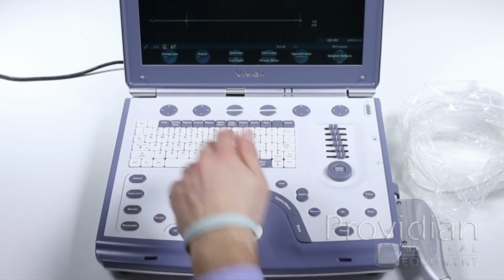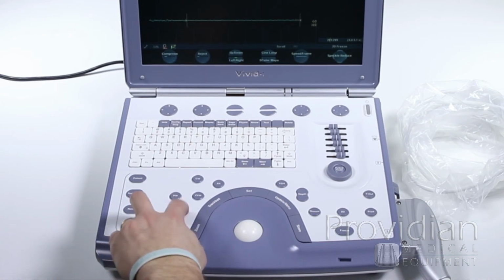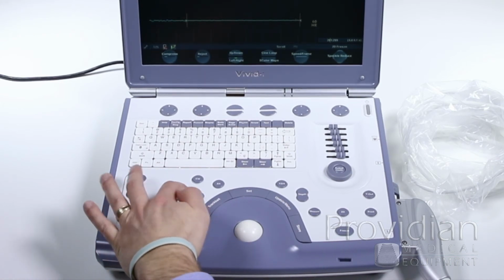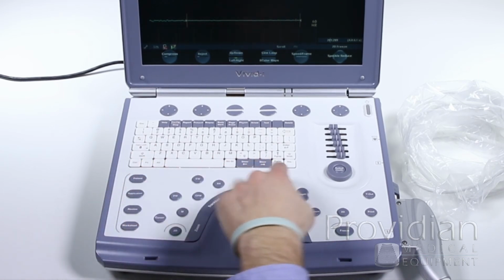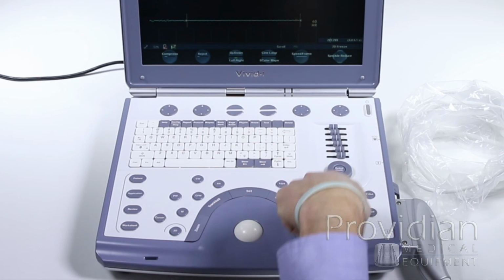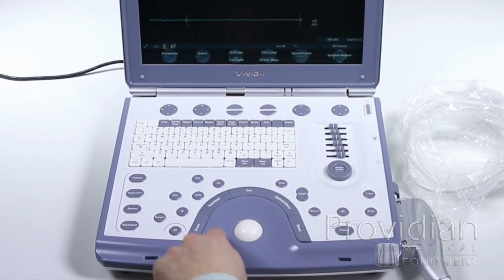So you have your imaging mode buttons, 2D, your cursor for the pointer, M mode, PW, CFM for color flow, CW, and this is a programmable Alt key, single screen, dual screen, quad screen, depth, measurements, and you have around here your zoom button.